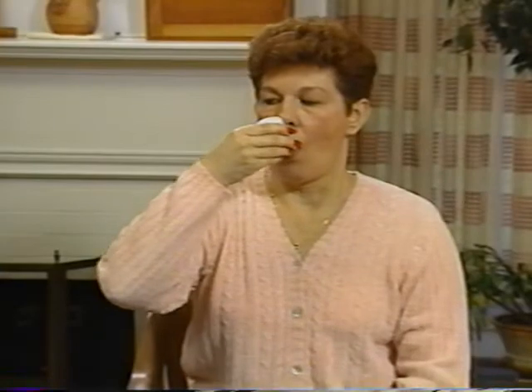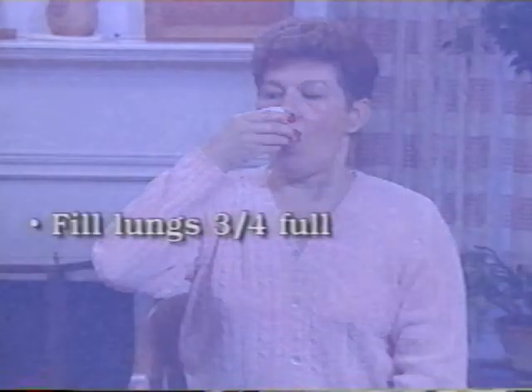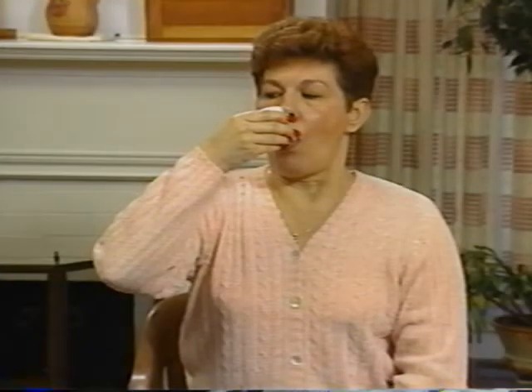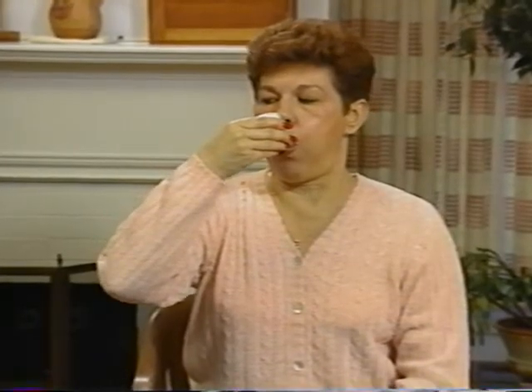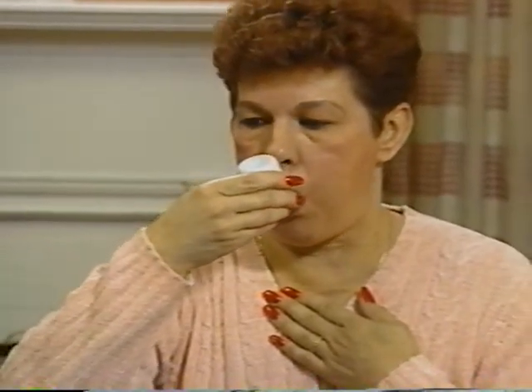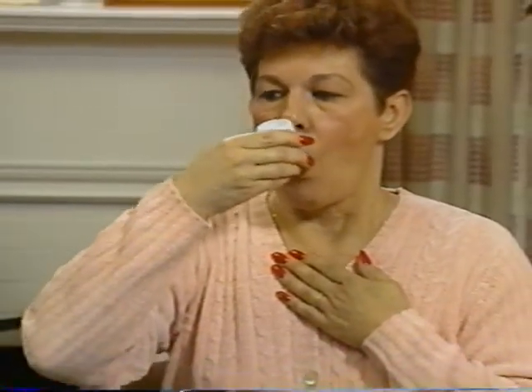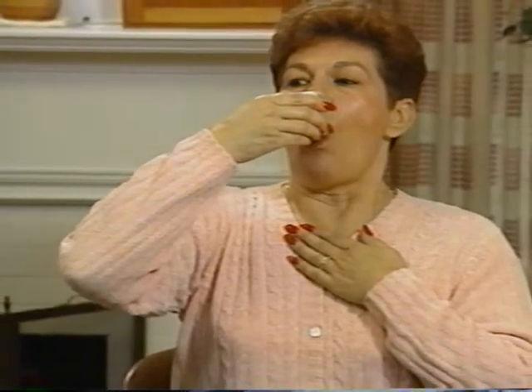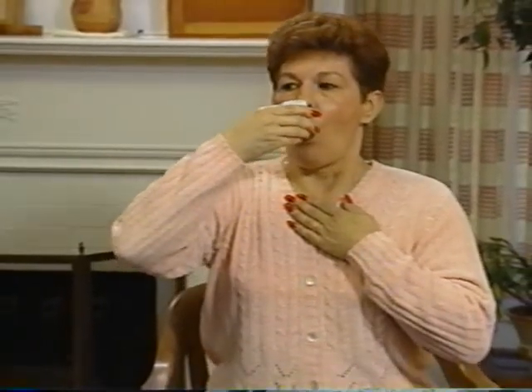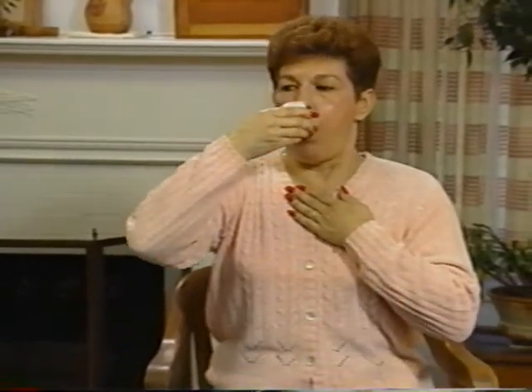Now, to begin, slowly breathe in to approximately 3/4 of a full breath. After holding your breath 2 to 3 seconds, begin to breathe out through the flutter at a reasonably fast but not too forceful speed. Think about feeling the vibrations in your airways, since the best results are obtained when there is a maximum fluttering in your chest. Breathe out through the flutter to a level slightly further than you would during normal breathing without the flutter. At this point, the urge to cough should be suppressed.